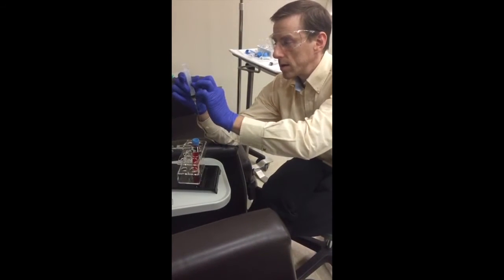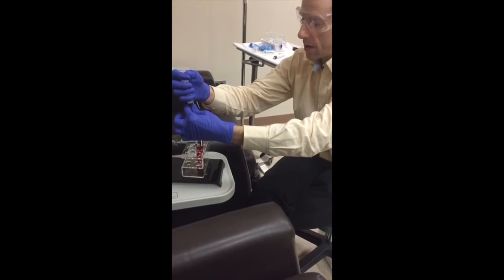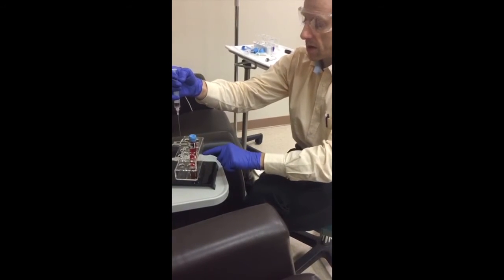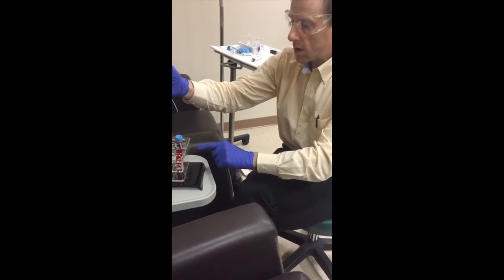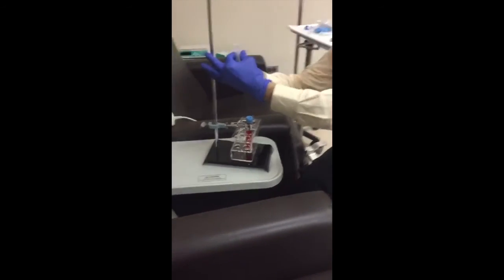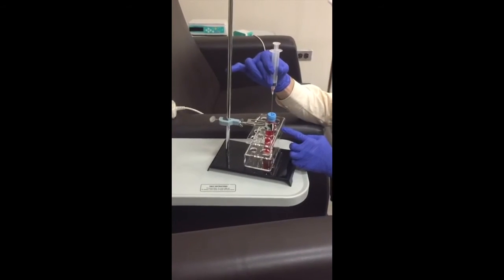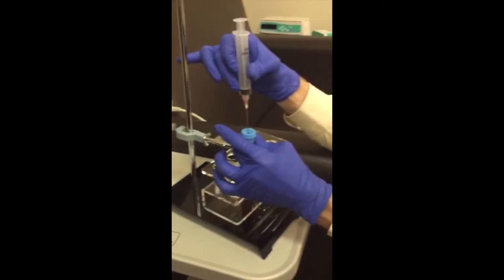You don't want any air or liquid to reflux back into the tube. If you're up too high and the vacuum refluxes it back, it creates turbulence that will dislodge platelets from the bottom where you just spun them and you'd have to re-spin the blood — that's an extra 10 minute penalty. Start with the valve closed, place your pinkies on the ring stand, position the needle centrally, and push down carefully until you feel the give. Then position the needle a little above the middle.